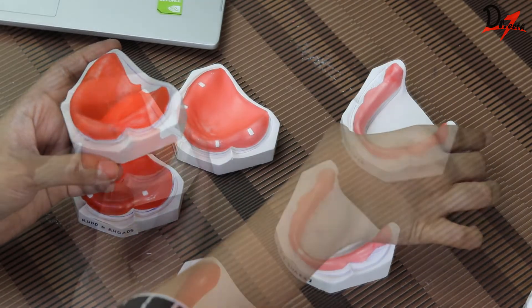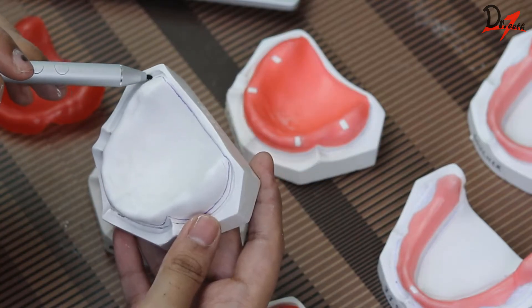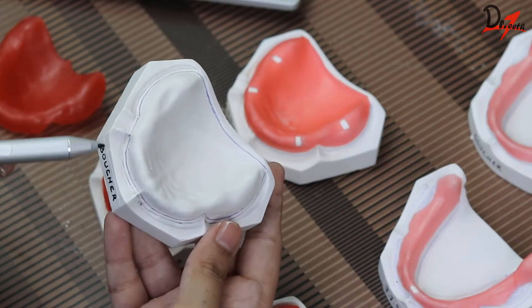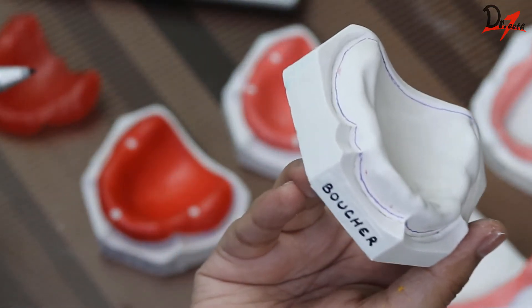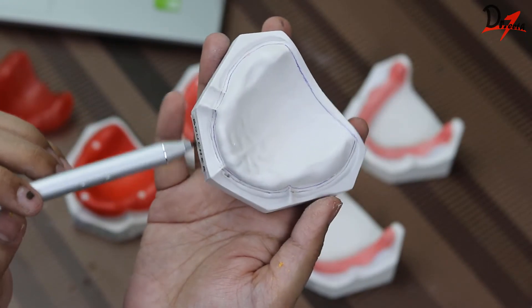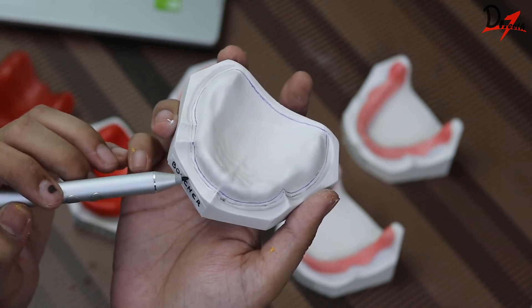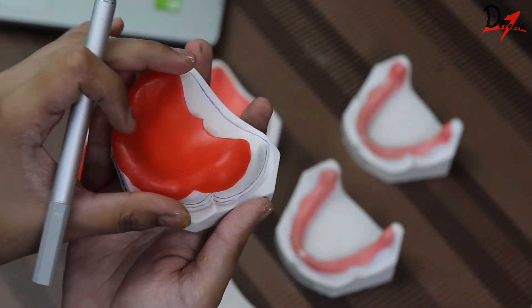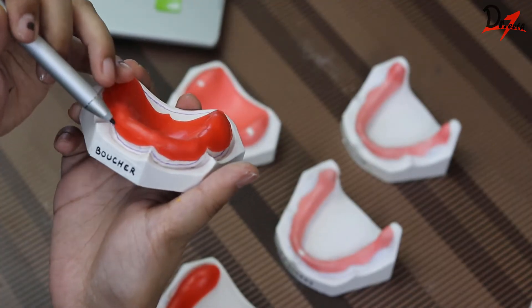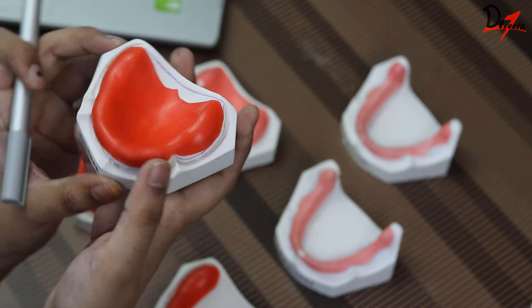While making the design, first we mark the depth of the sulcus all around and then 2 mm above it. As you can see, the purple line is going 2 mm above the line of the sulcus — that should be the extension of our custom tray. And 2 mm further above that should be your spacer. So in total, 4 mm above the sulcus should be the extension of the spacer.